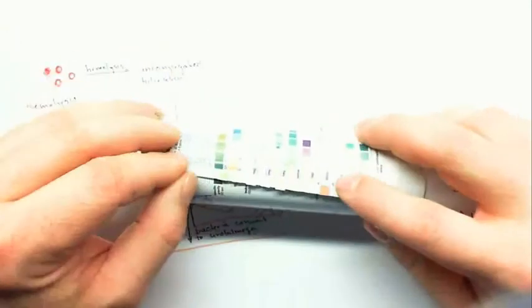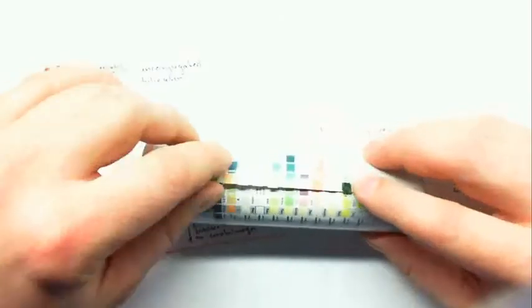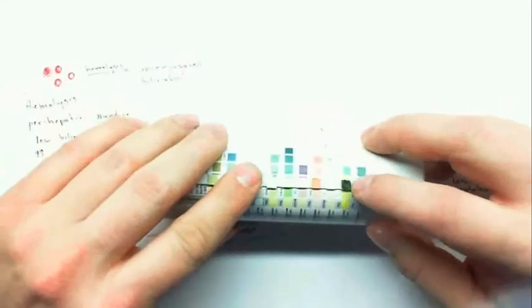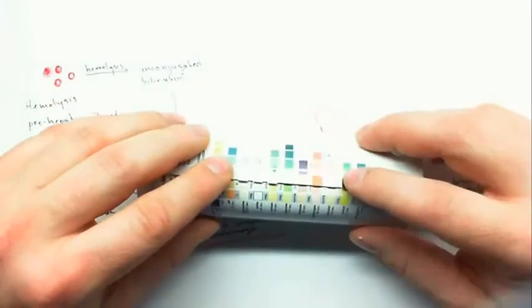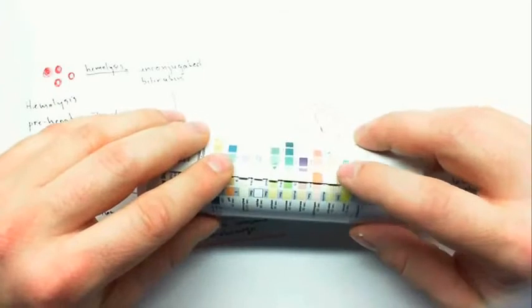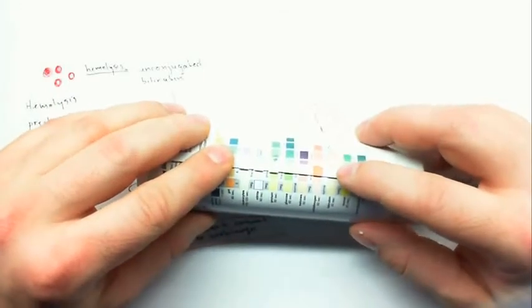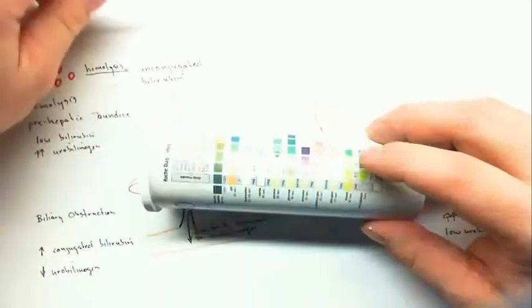In this stick, there's high urobilinogen, and there's also hemoglobin. So there's not a punctate or spotted pattern, it's more of a uniform color. If there was also higher bilirubin, this could indicate liver disease, but since there's not an elevation in bilirubin, this suggests hemolysis, especially since there's hemoglobin in the urine.